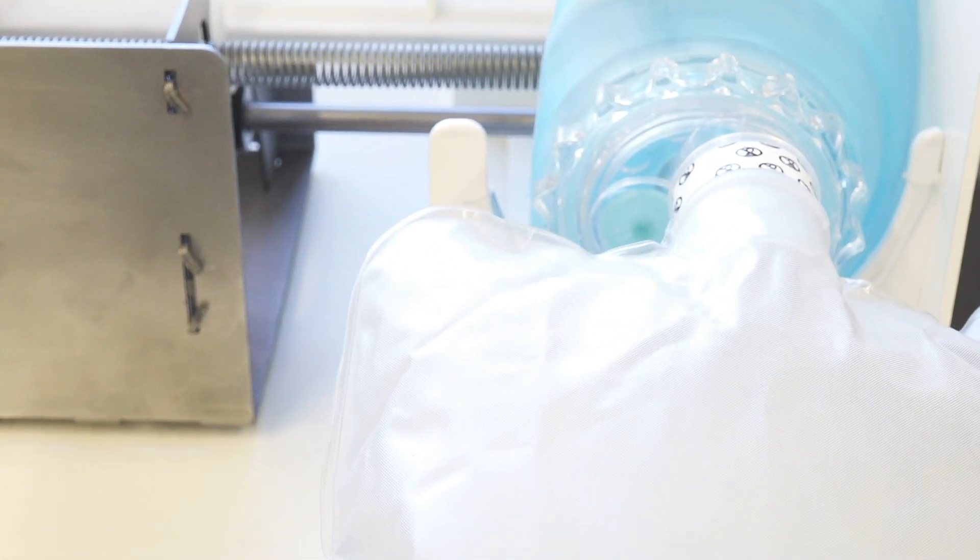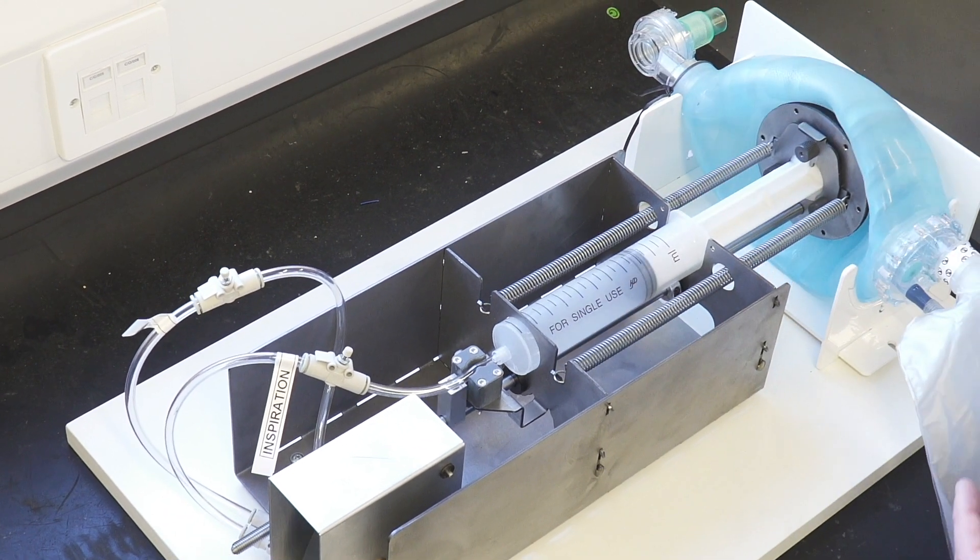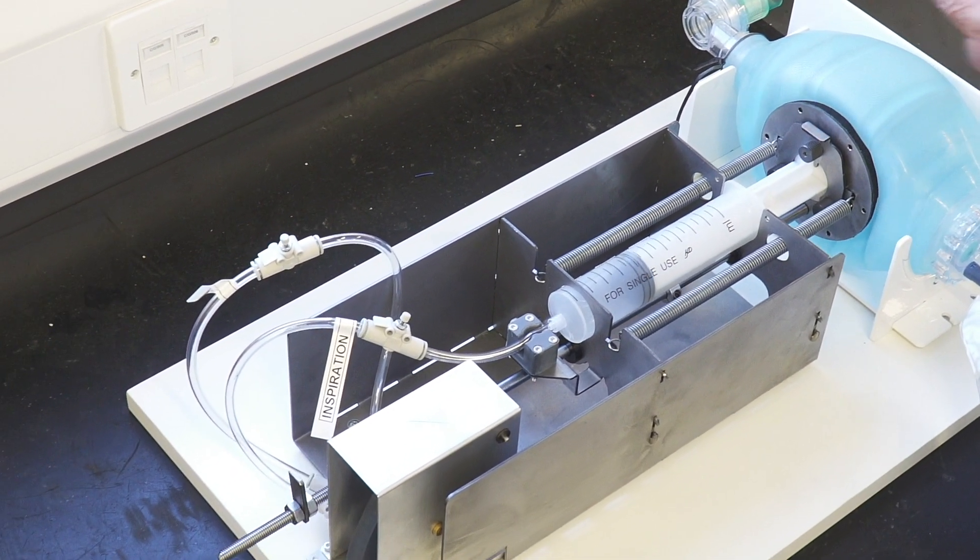The patient needs to be quite close to this because if it was a long tube the oxygen can shuttle backwards and forwards and isn't effective.